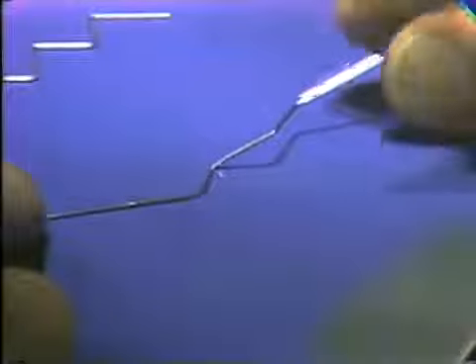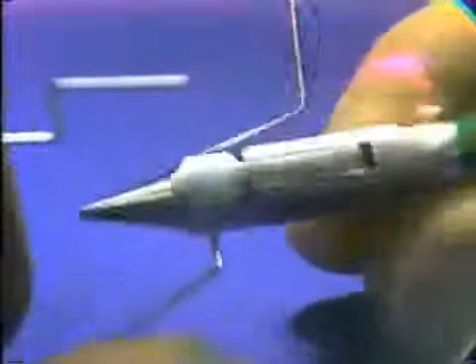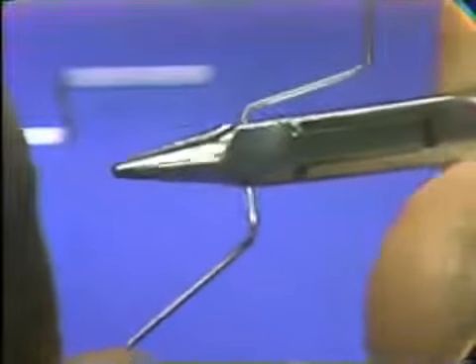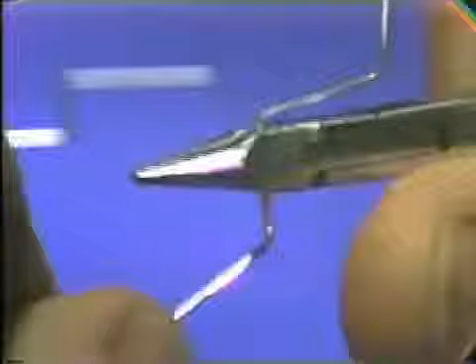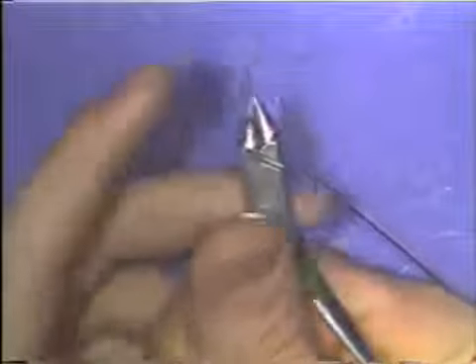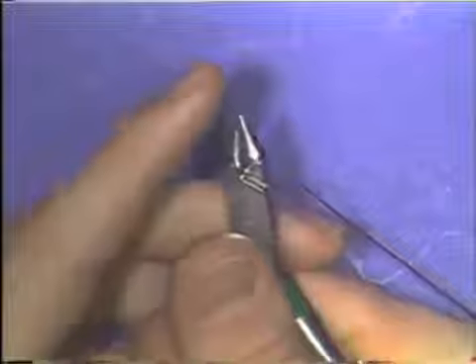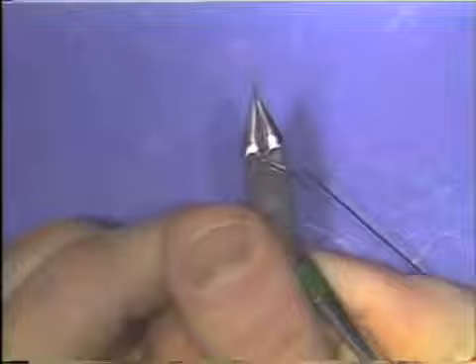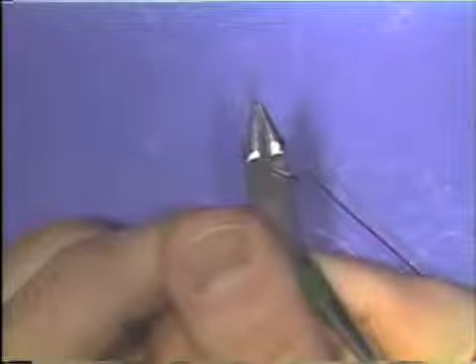The procedure then is to place the wire in the flat base portion of the beaks of the plier, just to the side of the mark that you made, and orient the wire so that the flat portion is directly parallel to the long axis of the beaks of the plier from the side view.